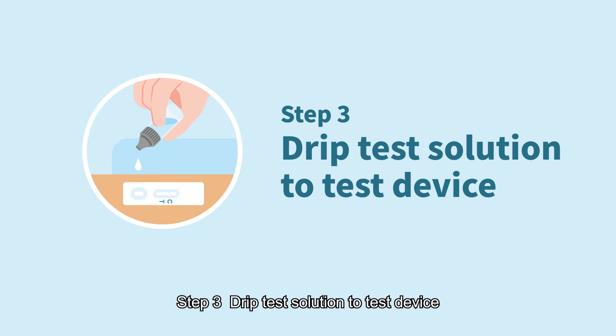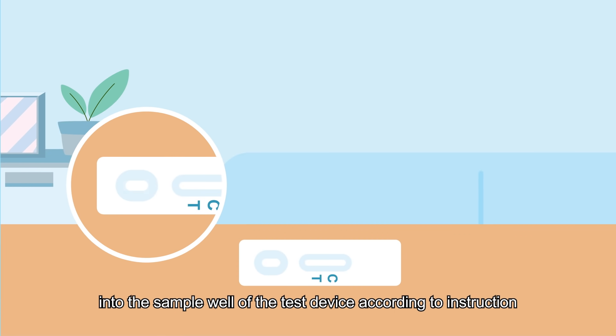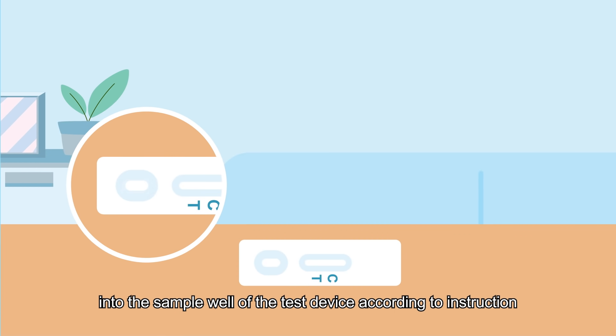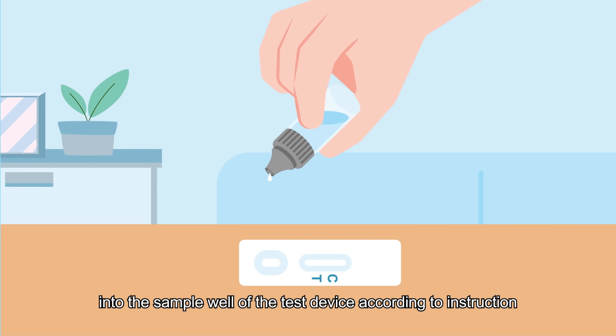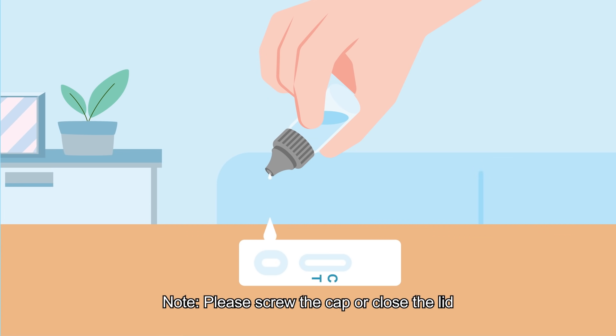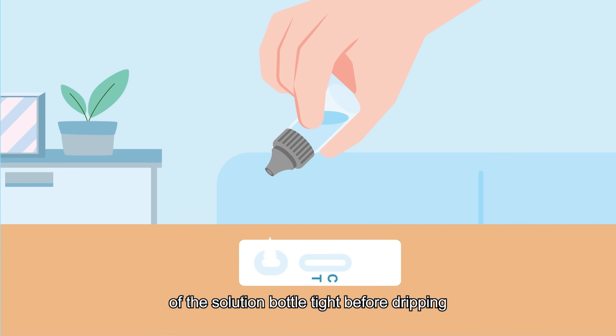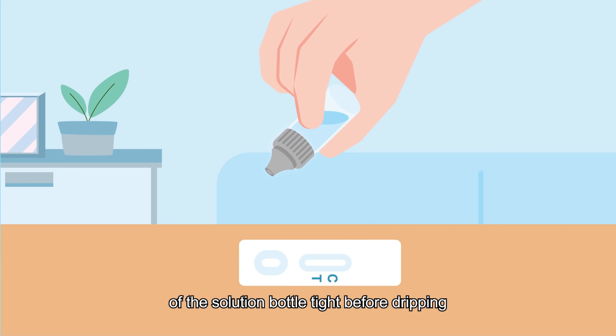Step 3: Drip Test Solution to Test Device. Slowly drip the test solution into the sample well of the test device according to instruction. Note: please screw the cap or close the lid of the solution bottle tight before dripping.